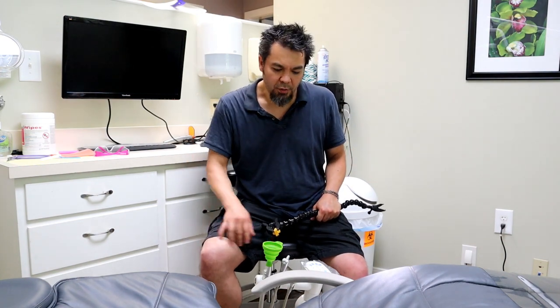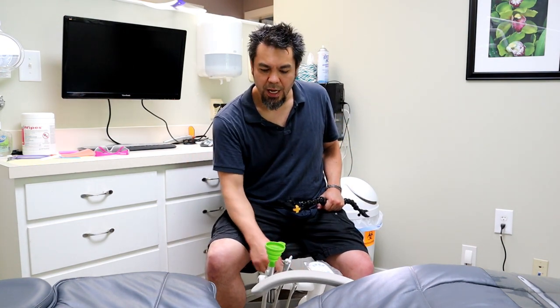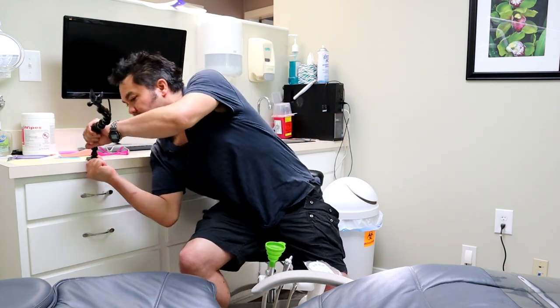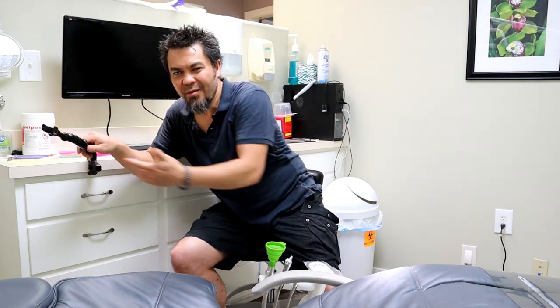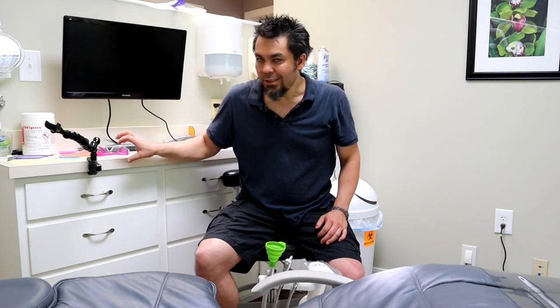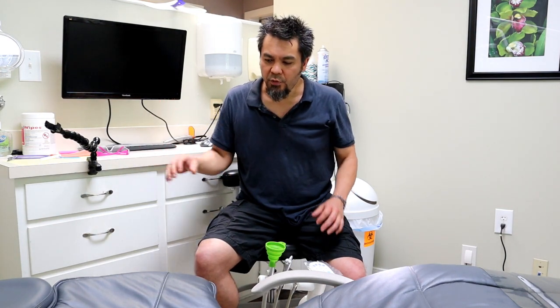On this particular dental chair, we've got one cylinder we can grab and we've got the armrest — and actually you could probably grab this tabletop too. You're going to have to see how it works for your particular setup. There are times when there's nothing to grab, but if you use those parameters — a cylinder 0.7 to 1.4 inches in diameter or a tabletop up to 1.4 inches — and find something in a convenient spot, then you've got the first step covered.